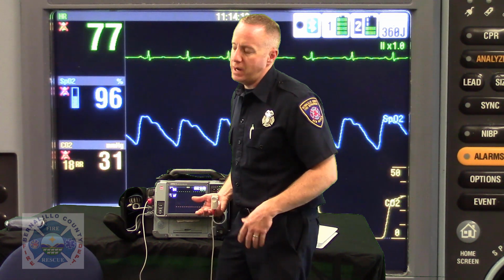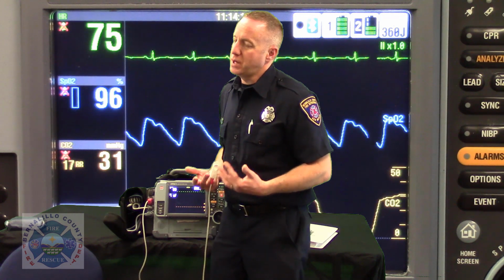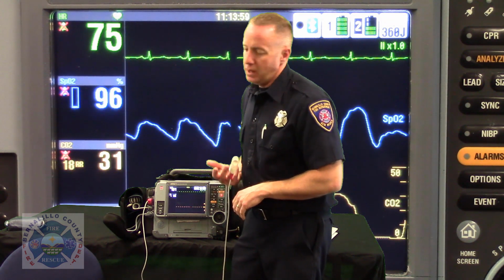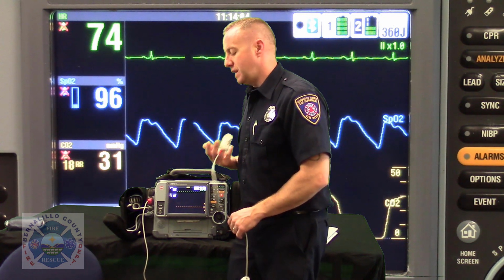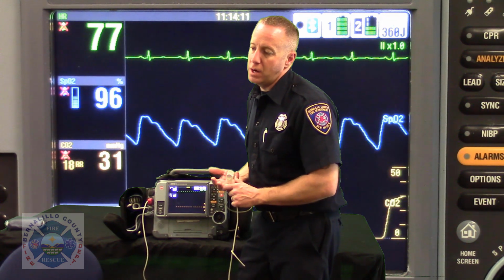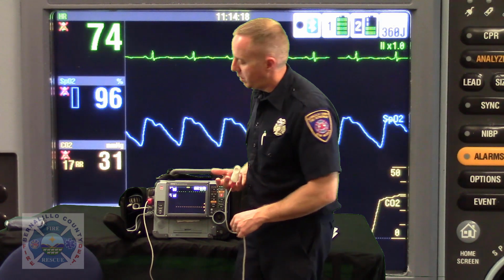That's just where I want them to be, right? But if their CO reading is above 10%, which in most cases of this nature they would be, this would auto-default to alarm you like, hello, look at the patient's SpCO reading. The monitor is going to do that for you. But that's what makes the pulse oximeter on the Lifepack 15 superior to the ToughStat probe, the little yellow one you keep in your first-out bag, because that pulse oximeter does not read SpCO, whereas the Lifepack 15 will.